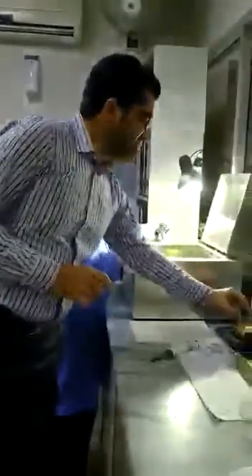Now these are the glass tubes in which we perform the test. Here you can see the pipettes which are used to perform the test. They are adjustable pipettes, and we have adjusted them to 100 microliters.